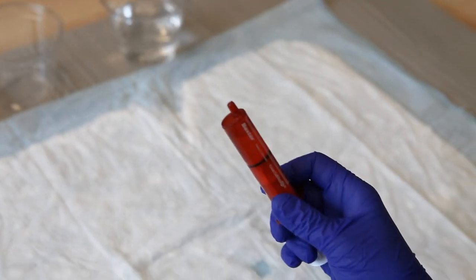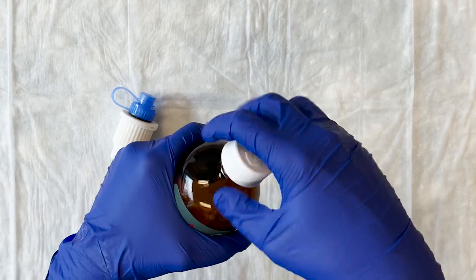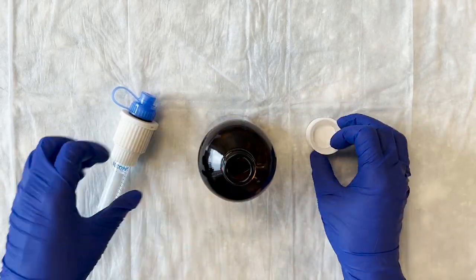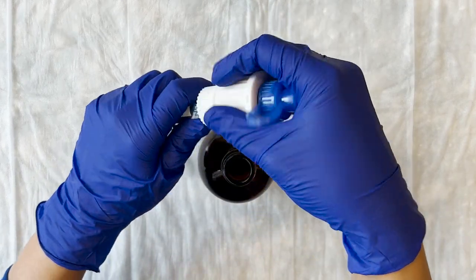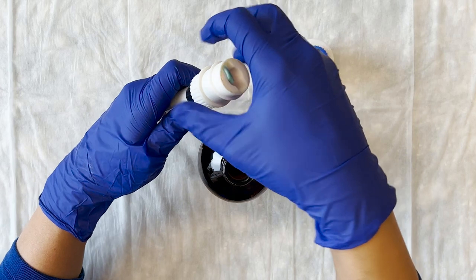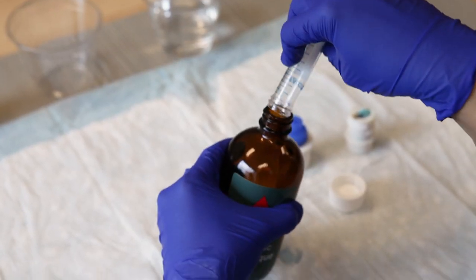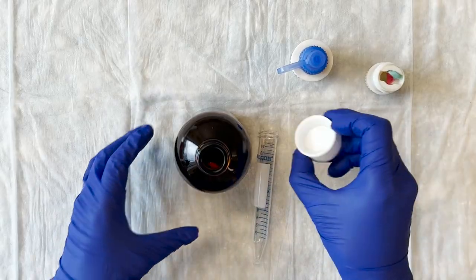Your child may drink more water after taking their medication. Your child's healthcare provider will tell you if your child may take any other drinks or food right after the dose. Speak to your child's healthcare provider if your child is having trouble taking their medication. If there is any solution left over in the dissolve and dose device, do not keep it. Instead, pour it into the old medicine bottle and store it there until you can dispose of it safely.